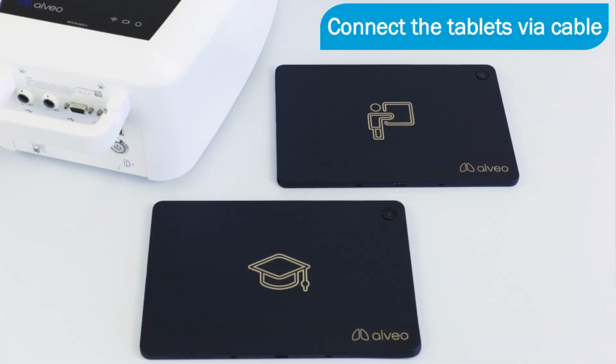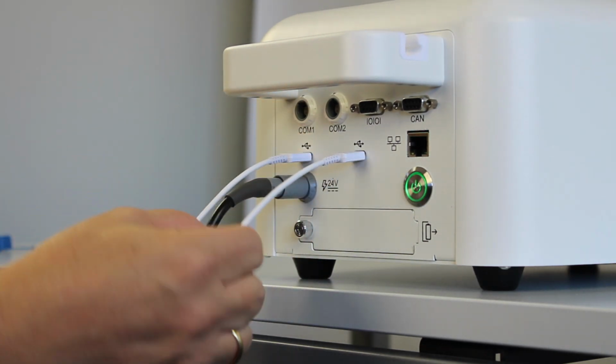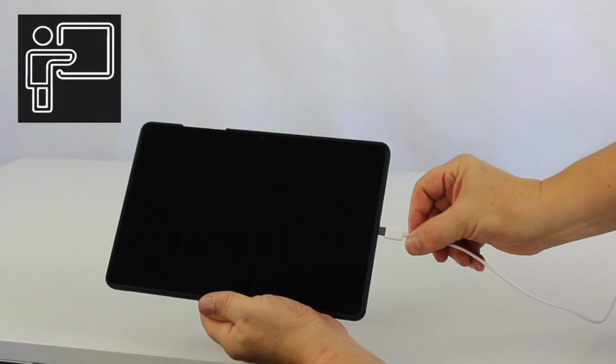Connect the tablets to alveo using the USB-C cables. First, plug the USB-C cable into any USB-C port on alveo. Then, connect the other end to the tablet.